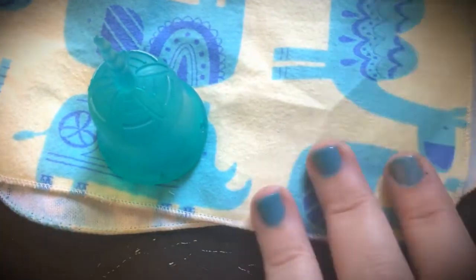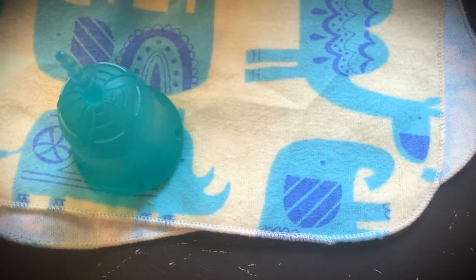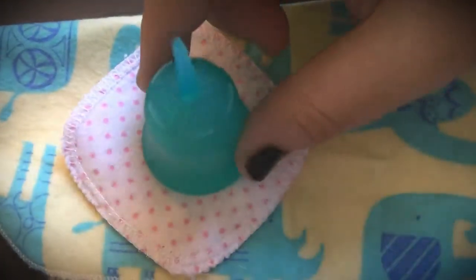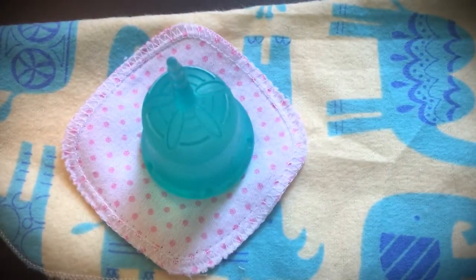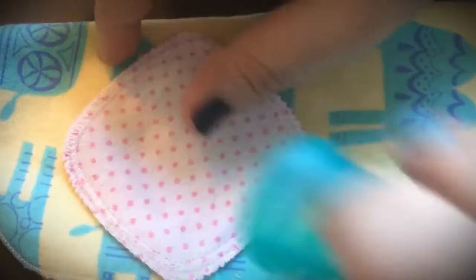If you don't want to carry a cloth wipe — and really, they're not giant, this one right here is about 4x4 — you can get a facial round, which is a lot smaller and more convenient to carry with you. With the facial round, you would just spray it and then wipe.